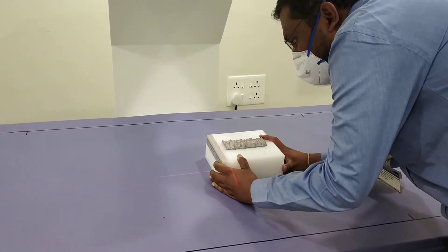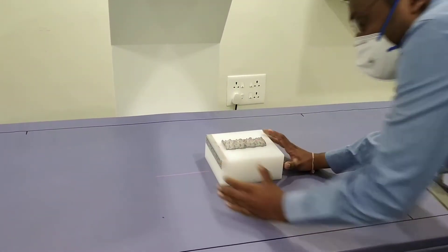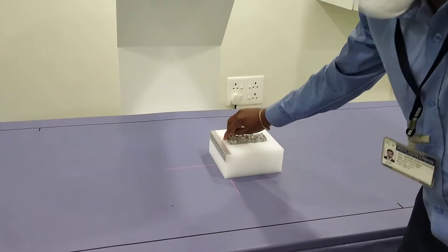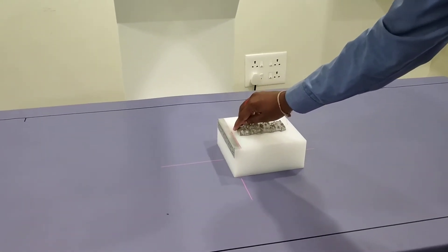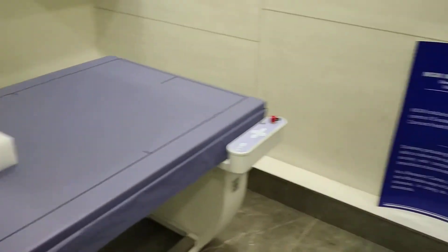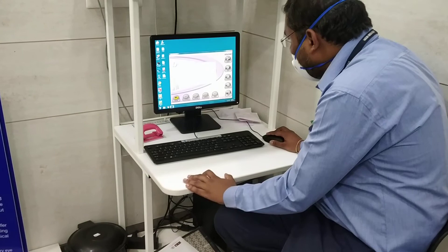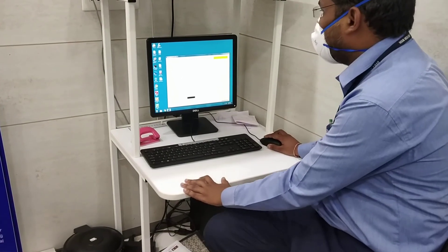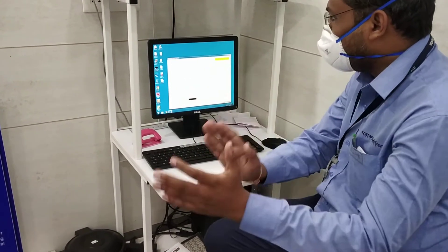You have to make it like this — turn to close. This marking you have to adjust. After that you have to press Continue. Now your Daily QC has been started. It will take a few minutes.